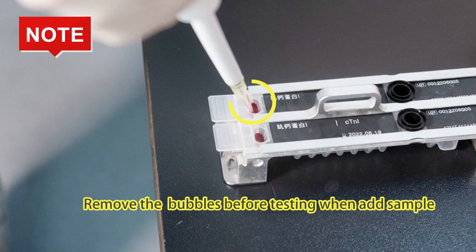Note, first, remove the bubbles before testing when adding sample.